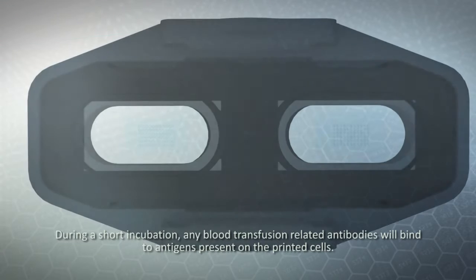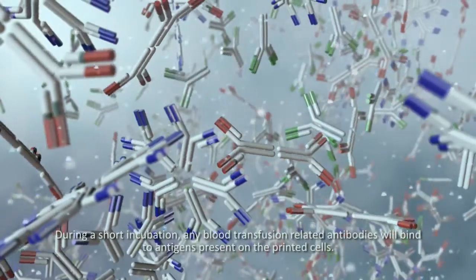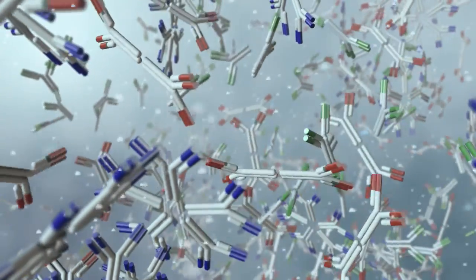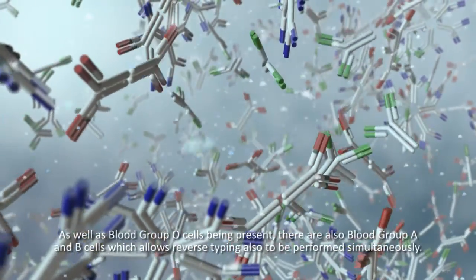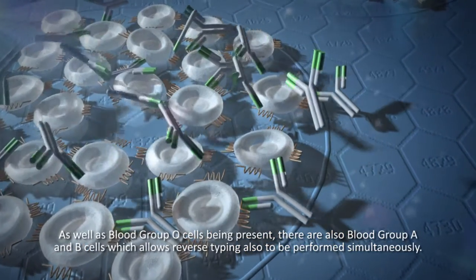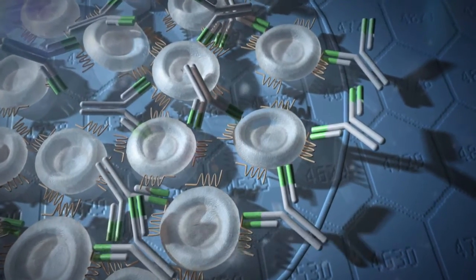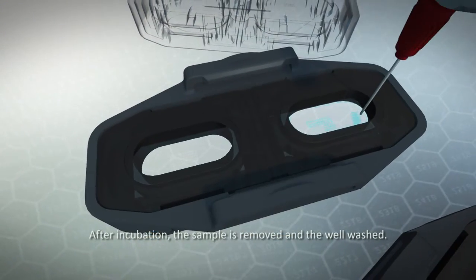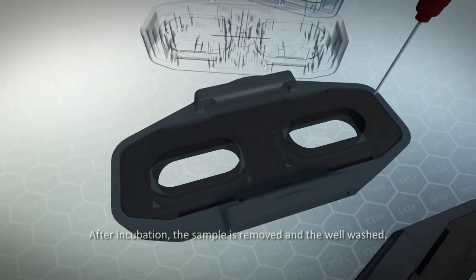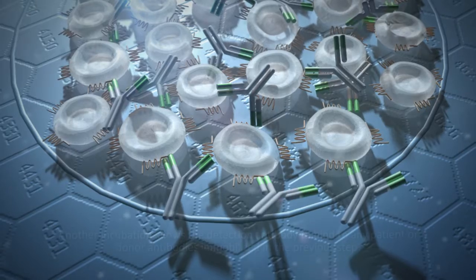During a short incubation, any blood transfusion-related antibodies will bind to antigens present on the printed cells. As well as blood group O cells being present, there are also blood group A and B cells, which allows reverse typing also to be performed simultaneously. After incubation, the sample is removed and the well washed. Subsequently, a detection reagent is added.